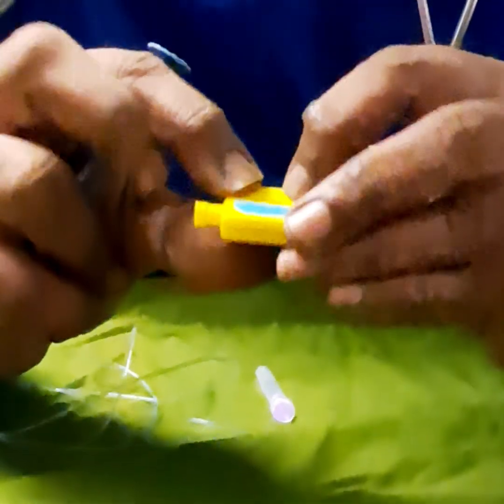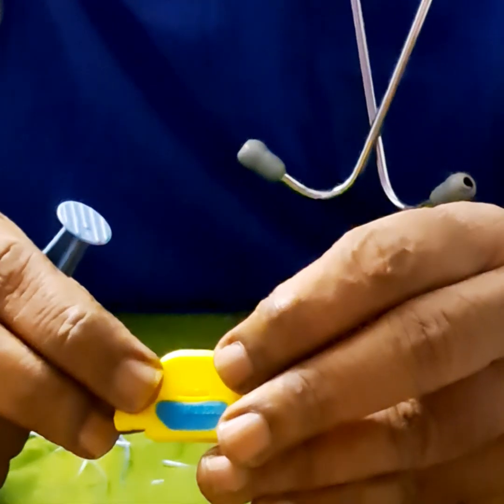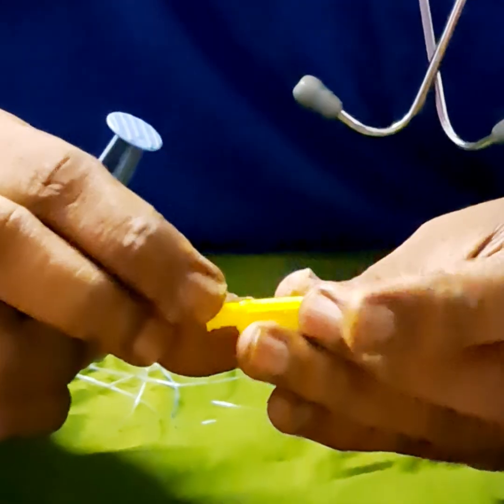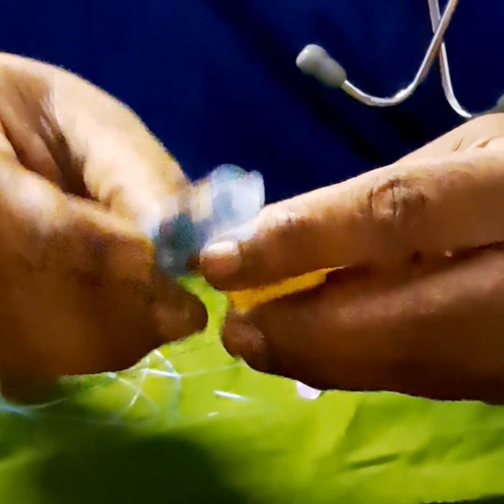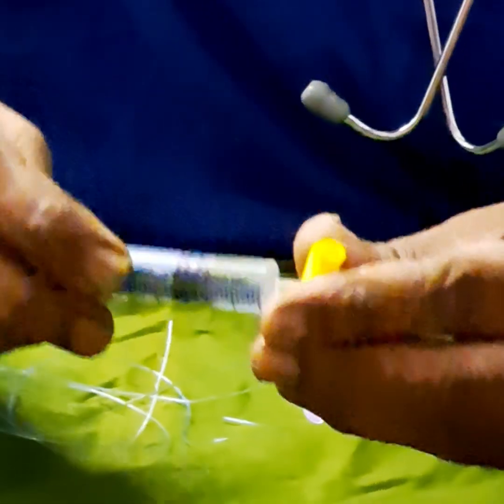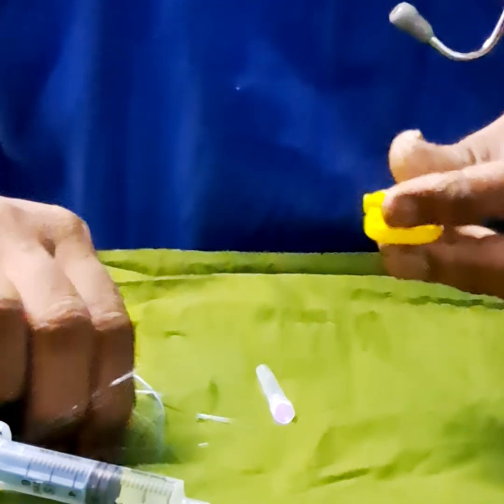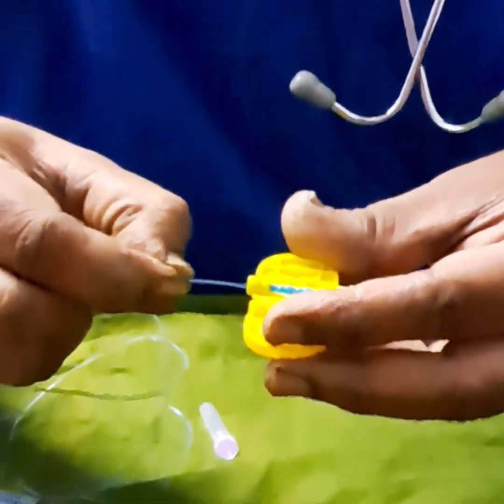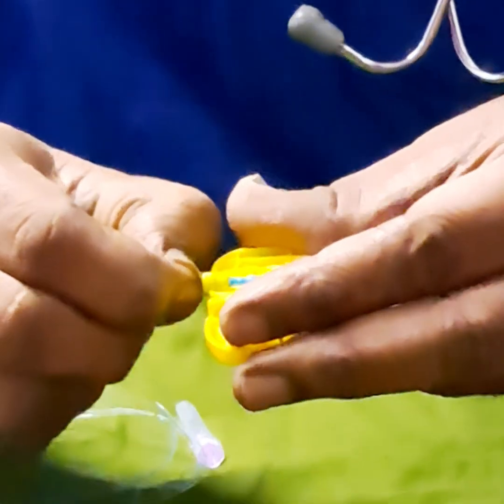You can see — we can focus on this hole. What happens if I close? If I close, the hole will get completely compressed. There is a part coming out here that will compress the silicone. Now I am again opening it and introducing the catheter through this blue part. Now you see it has gone full.